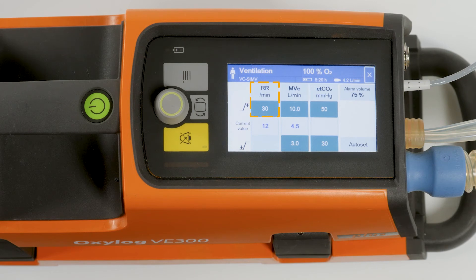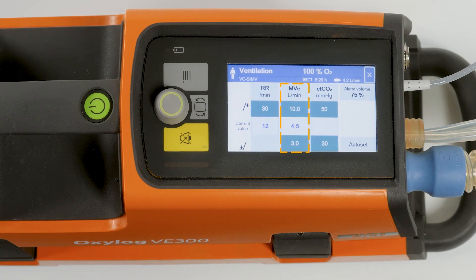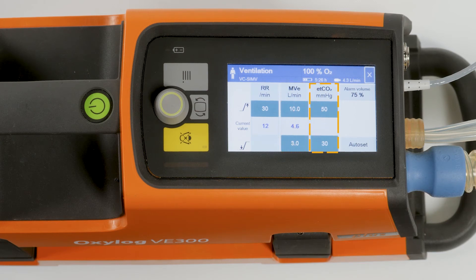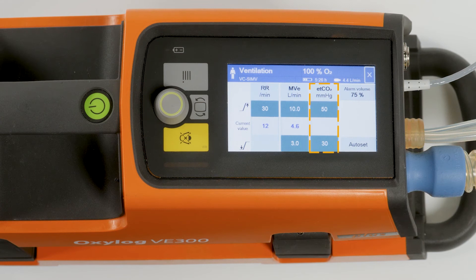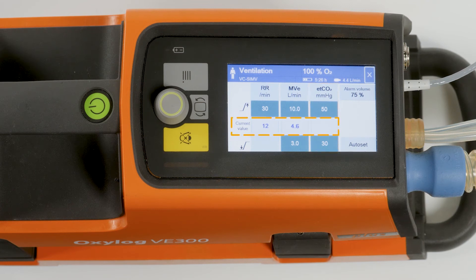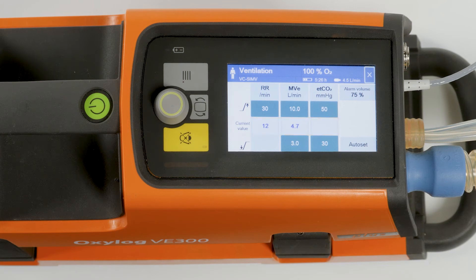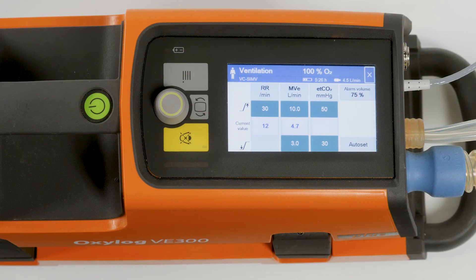For the respiratory rate, the upper alarm limit. For the minute volume, the upper alarm limit and lower alarm limit. For the end-tidal CO2 concentration, if the CO2 sensor cable is connected, the upper and lower alarm limit. The current value is displayed between the alarm limits. The setting principle is: select, adjustment with the rotary knob, confirm with the rotary knob.